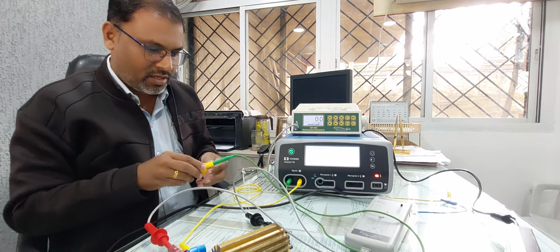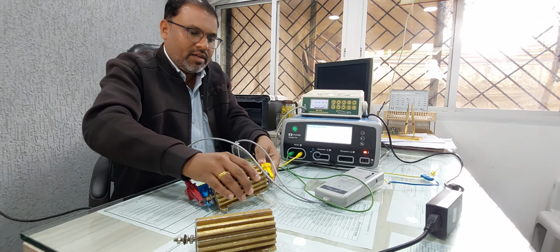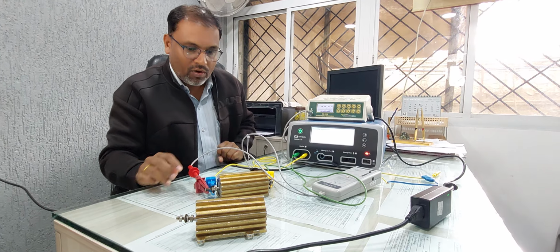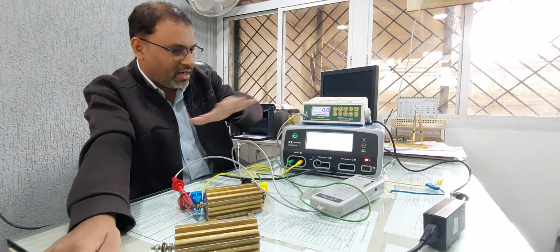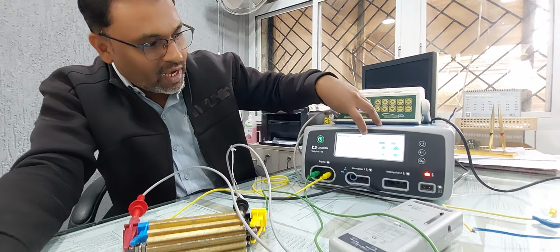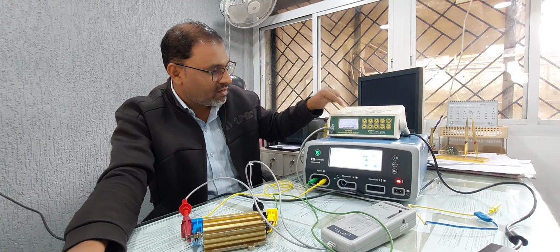Okay, and the differential scope probe you have to connect here in this way. Okay, so now all connections are done. Again you have to reconnect the 5k ohm, already we have connected. Again all connections are done. Just we have to switch from the monopolar to bipolar and press next. Again what target value have they given? 12 volt, and we have to adjust the target value here.